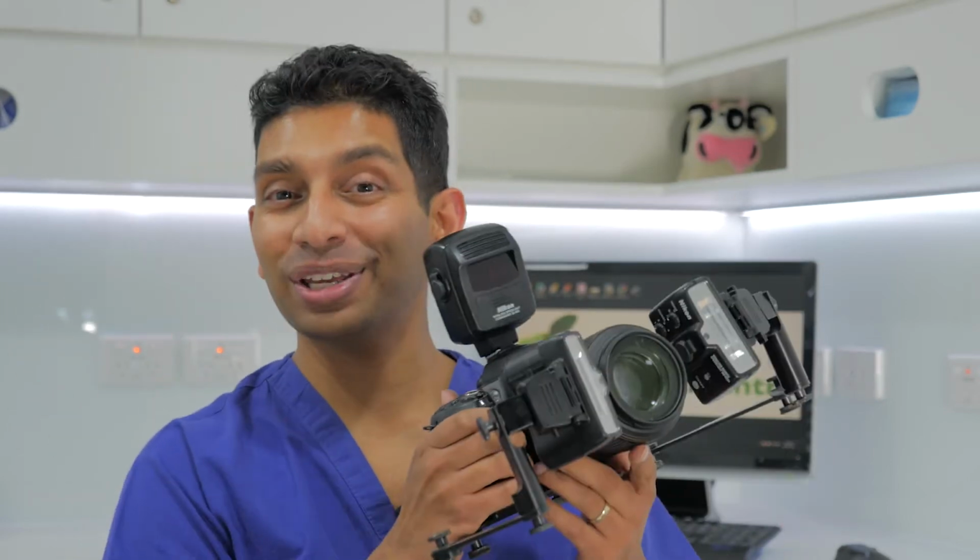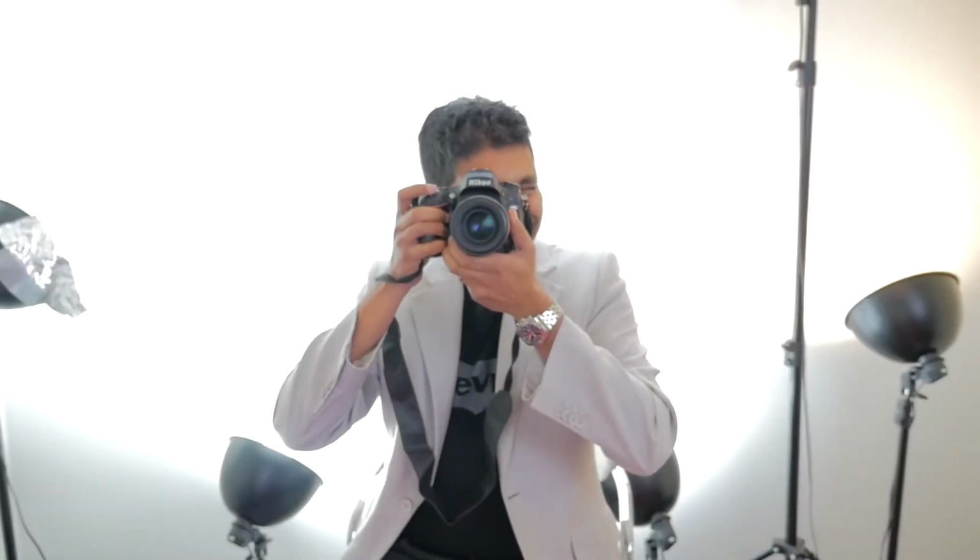Today, we're going to be looking at easy camera settings. Now my last video, which you can see up there, was about how to take dental photography using manual settings. It went to the in-depths of the different types of settings you need to change to get good photos. Now that's great if you're trying to troubleshoot. But for most of us, we just want to pick up a camera and be able to take a picture really quickly to communicate to the patient.